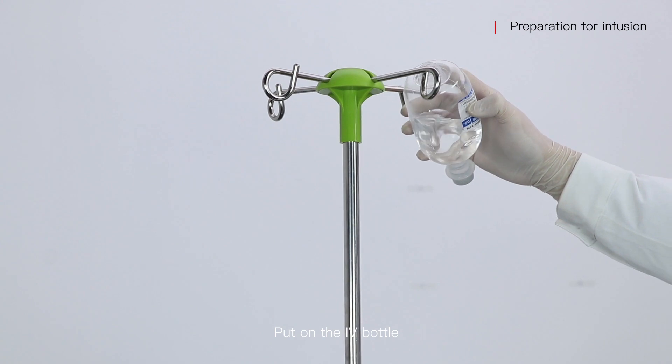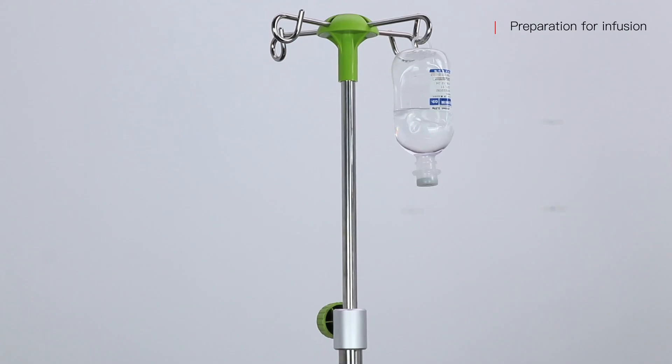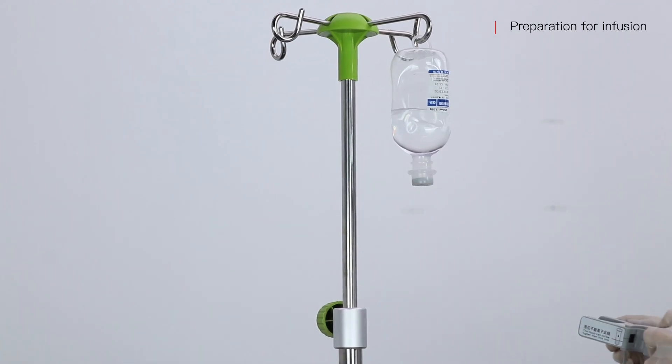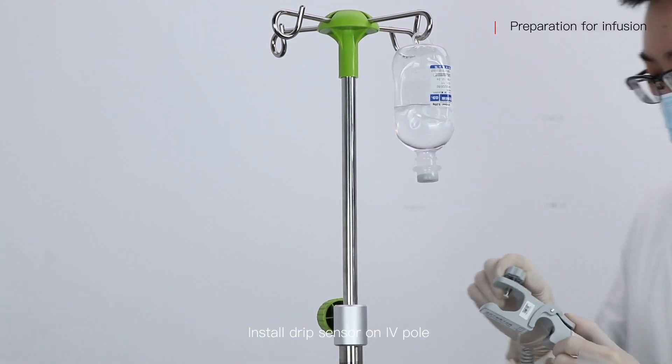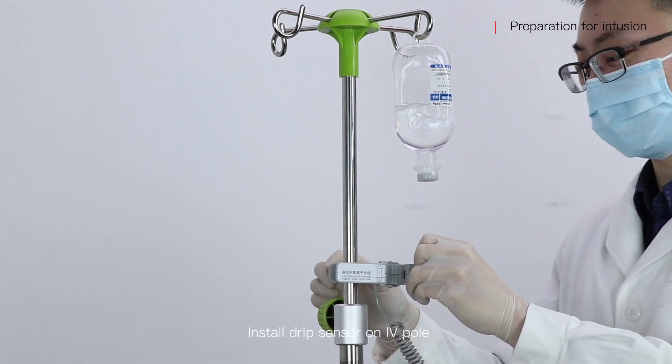Put on the IV bottle. Install the drip sensor on the IV pole.